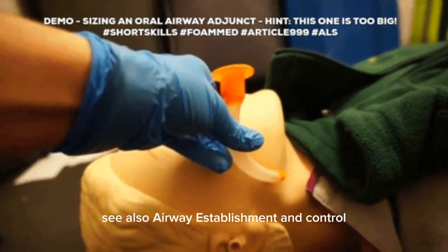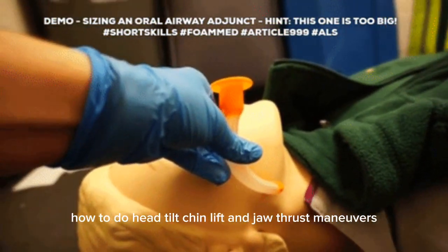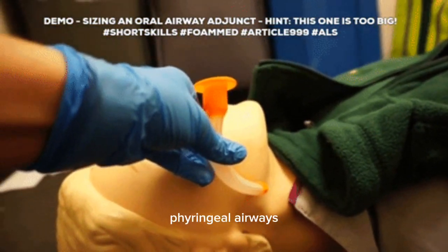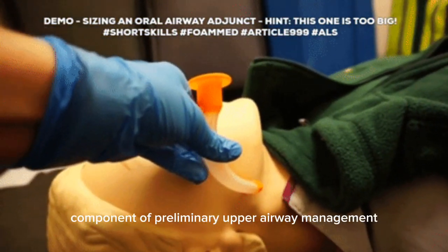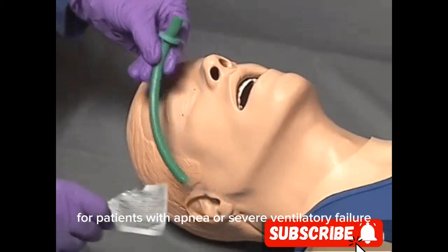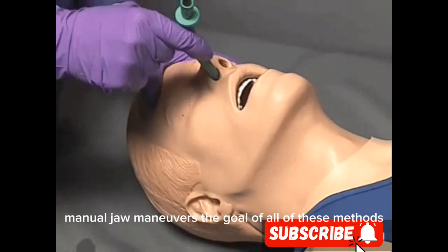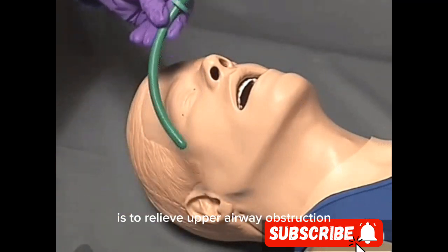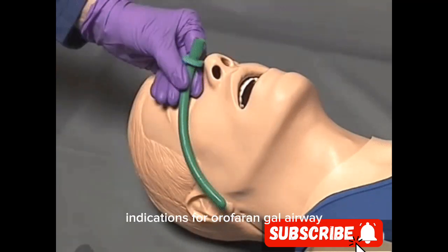See also: airway establishment and control, how to do head tilt chin lift and jaw thrust maneuvers, and how to insert a nasopharyngeal airway. Pharyngeal airways — both oropharyngeal and nasopharyngeal — are a component of preliminary upper airway management for patients with apnea or severe ventilatory failure, which also includes proper patient positioning and manual jaw maneuvers.